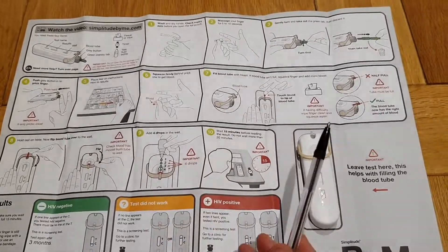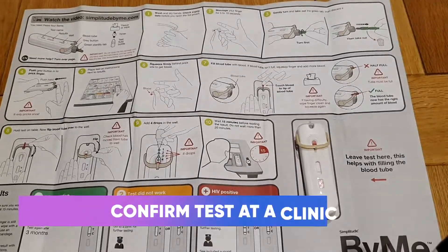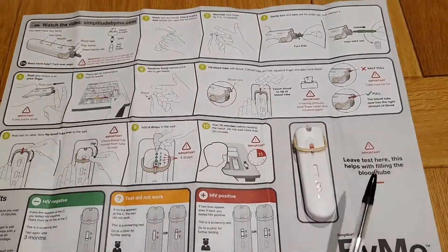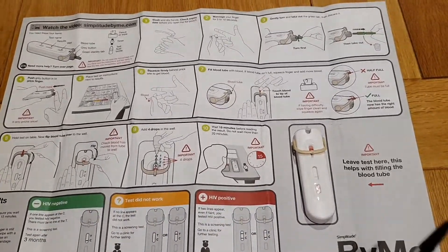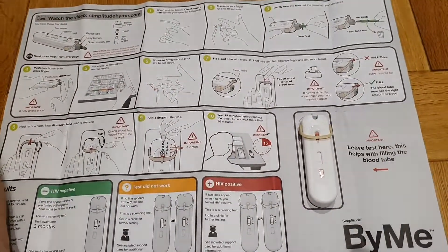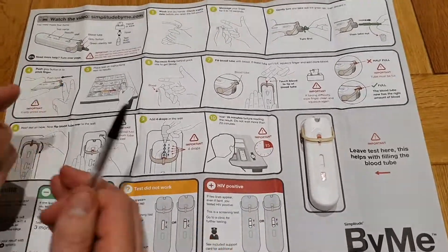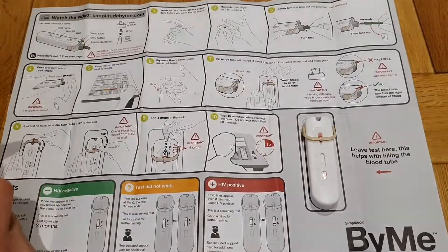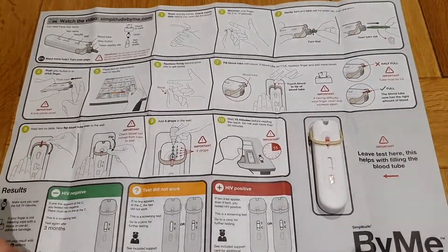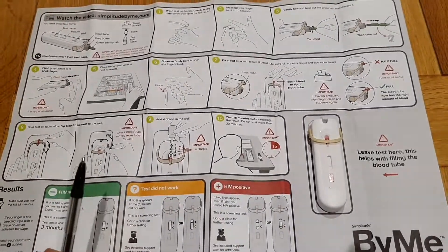It's a screening test, so you have to confirm screening tests by getting a blood test at a sexual health clinic. If you do get a positive result, you've got to get it confirmed, because sometimes these tests — not this particular one, but any point of care test — can give out a false positive result. Also, if it's within 72 hours of a potential exposure, you need post-exposure prophylaxis; you can get that at your local sexual health clinic or relevant department depending on what country you live in — I've done a video on that.